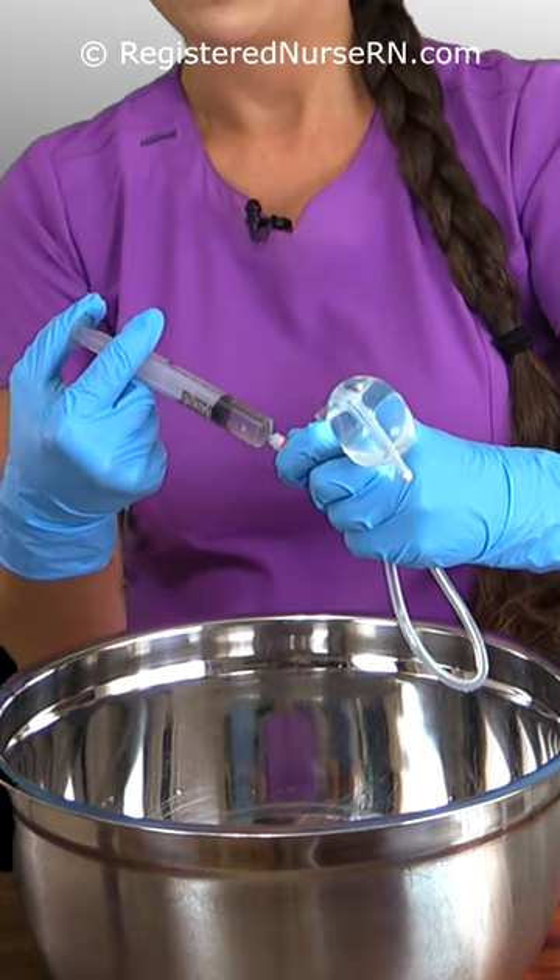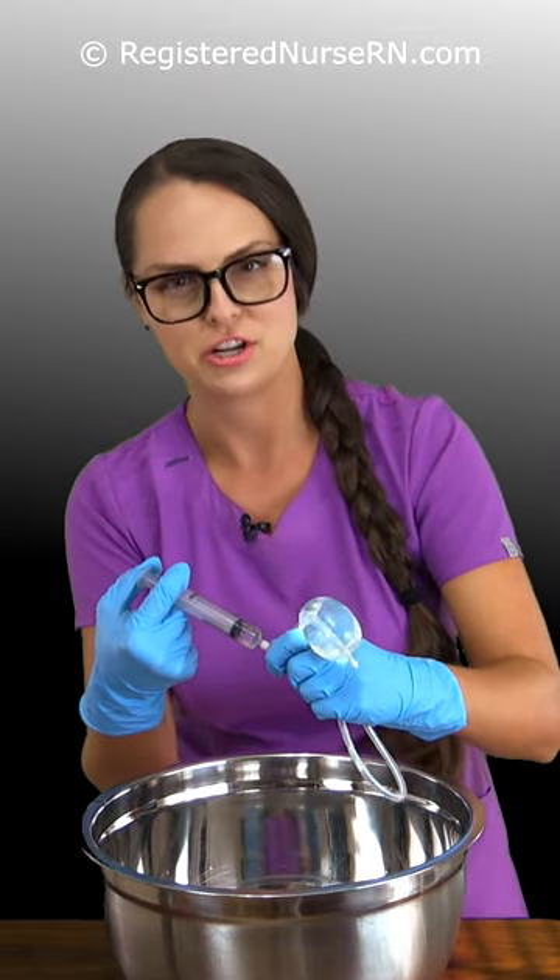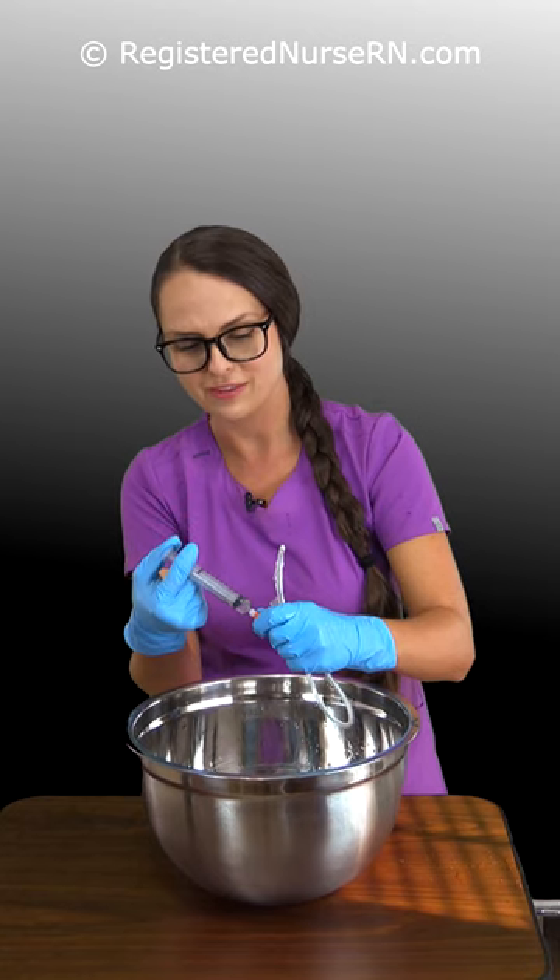40. I can push it pretty well. Really blowing up there. This is going to make 50. I don't think that would feel too good sitting in your bladder. There we go.